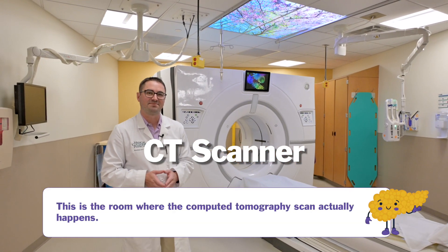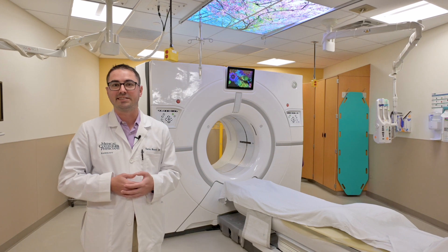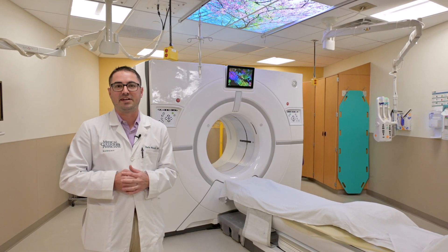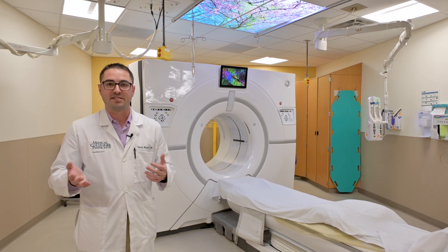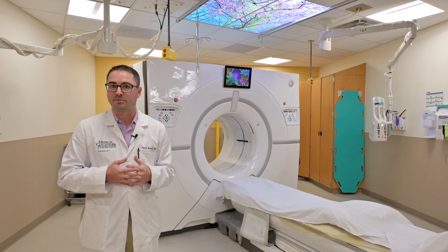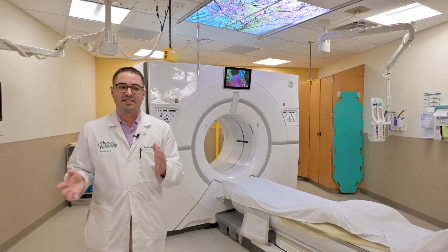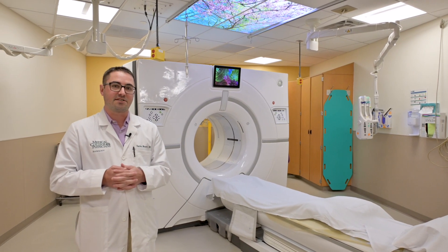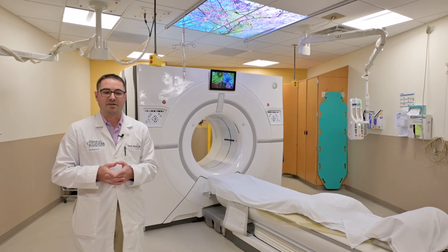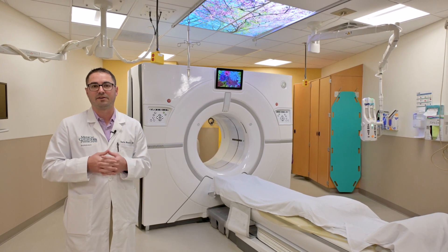So here we are at CT. CT, unlike ultrasound and MRI, is an imaging modality that uses radiation and exposes body tissues to radiation in order to create the images we need. It is often the first imaging modality you might encounter as a pancreas cancer patient, as typical presentations are either to primary care physicians or to the emergency room, and the first imaging ordered would be a CT scan to figure out what's going on. There are some differences between a CT scan ordered in that setting versus a full pancreatic cancer staging CT scan, but this is a primary workhorse in imaging diagnosis and workup for pancreatic cancer patients.